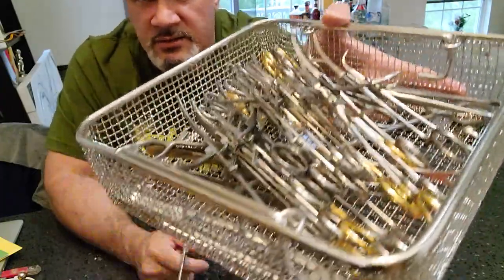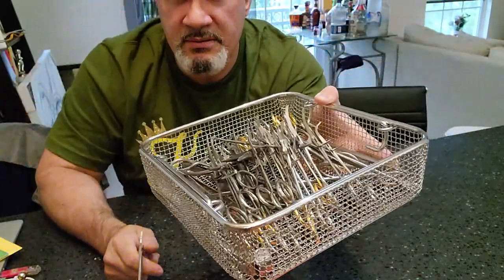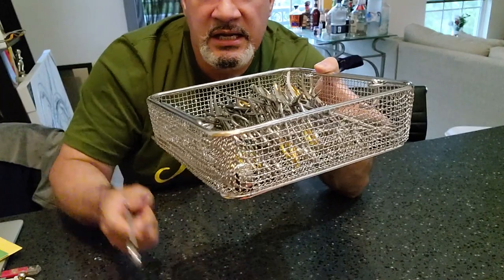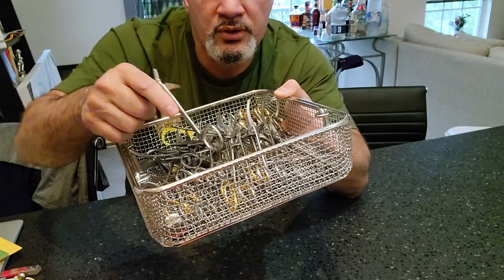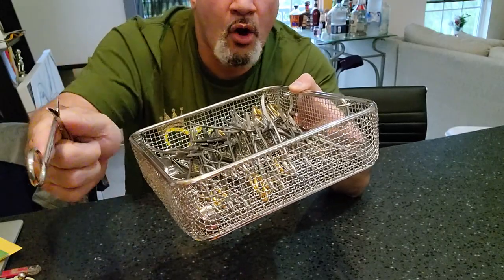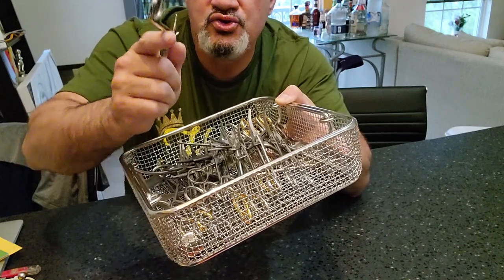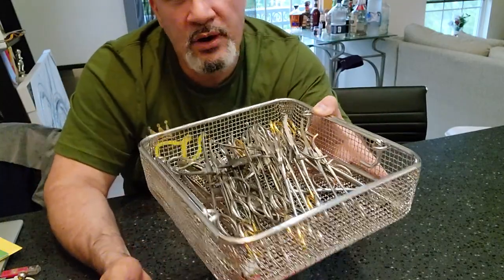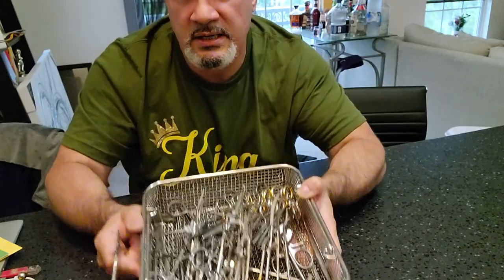You really can't see the scissors in there. Can you identify where the sharps are? If they're sticking straight up and I'm sticking my hand in there, I'm going to wind up jabbing myself. OSHA 1910.1030 states you shouldn't be reaching into containers or bins to avoid being stuck by soiled items. This is not safe to be used on a patient, so it's not safe for the person assembling it. If you get jabbed, you still need to report it to occupational health and follow protocols.